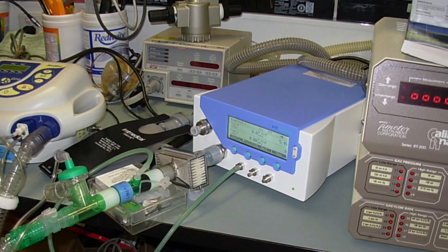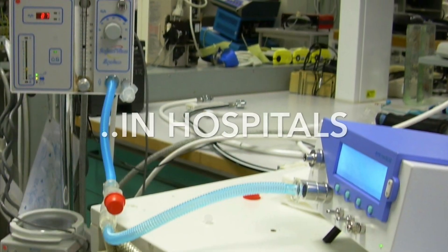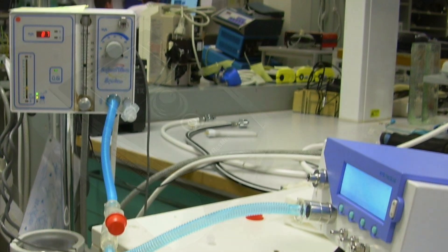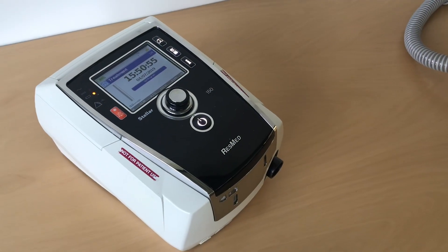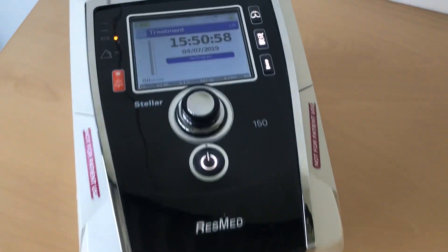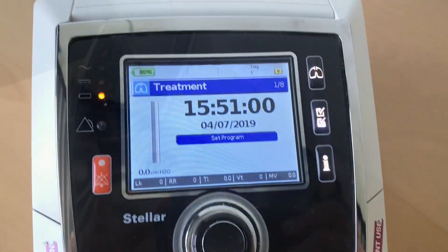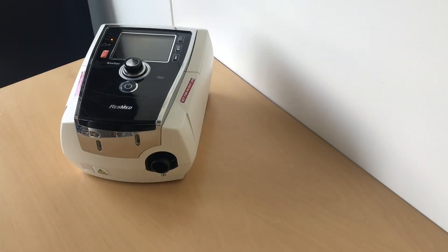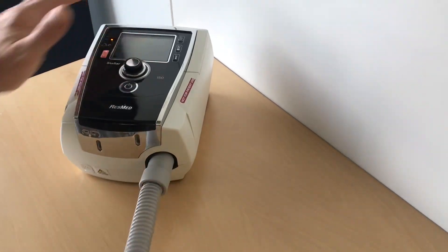Hospitals can save a lot of costs by testing their medical devices. I want to show you how to test a ResMed home care ventilator, in this case a Stellar, with a Citrex H3 gas flow analyzer.